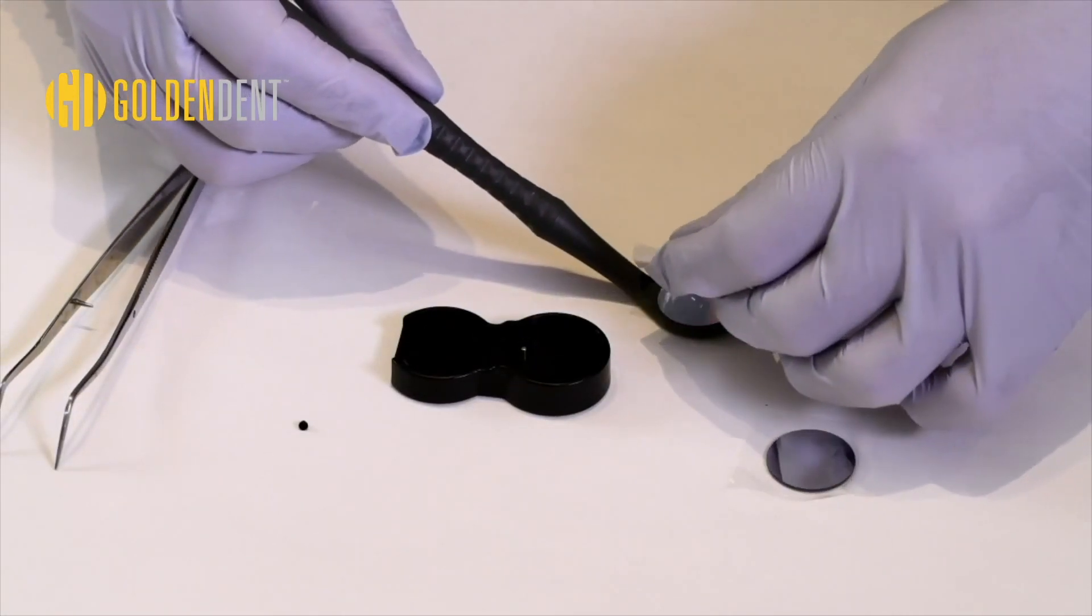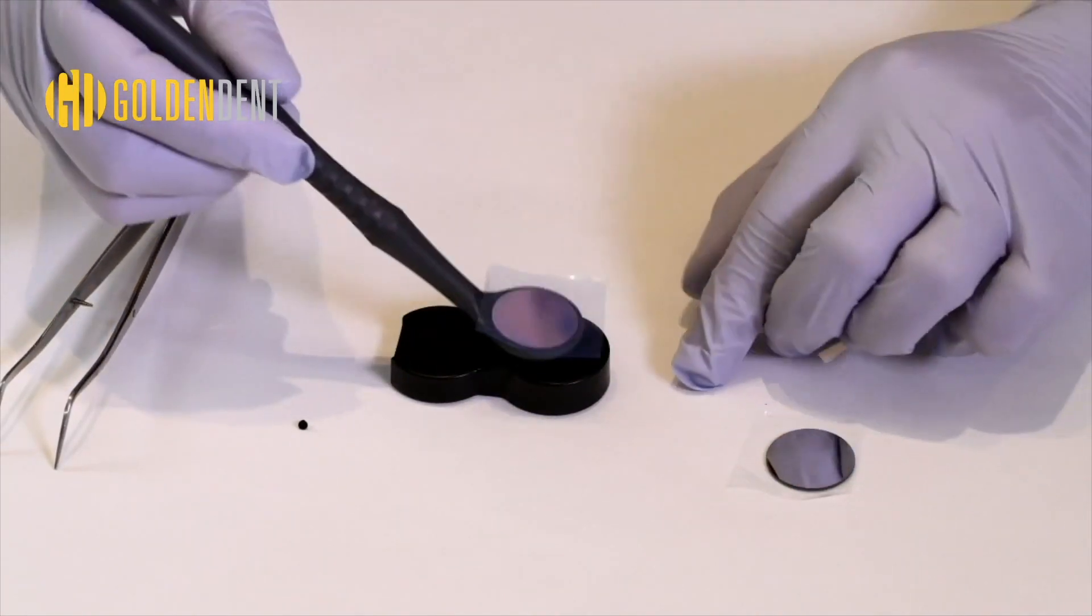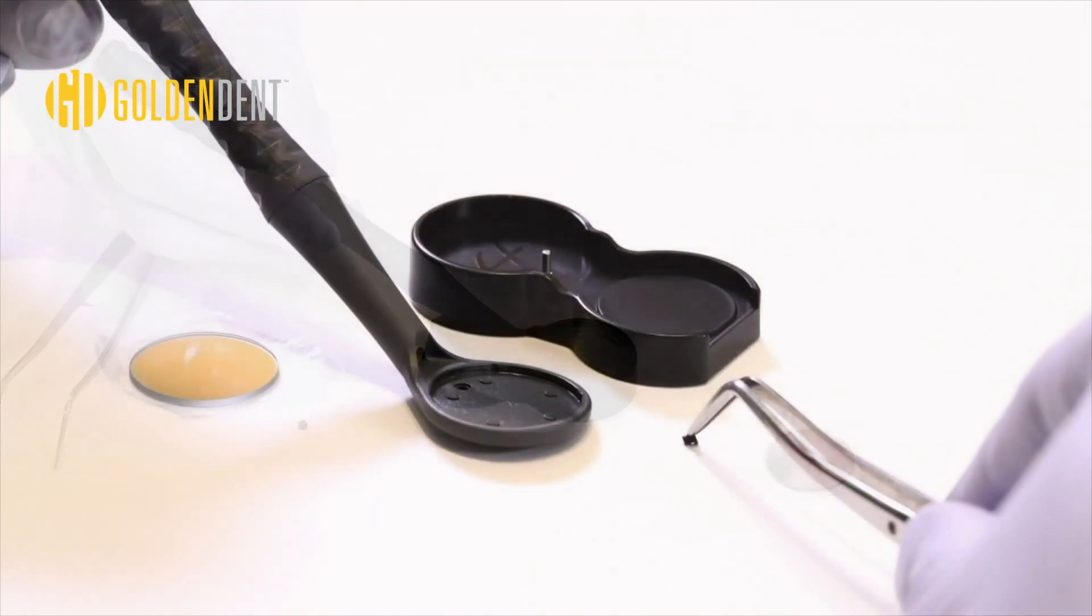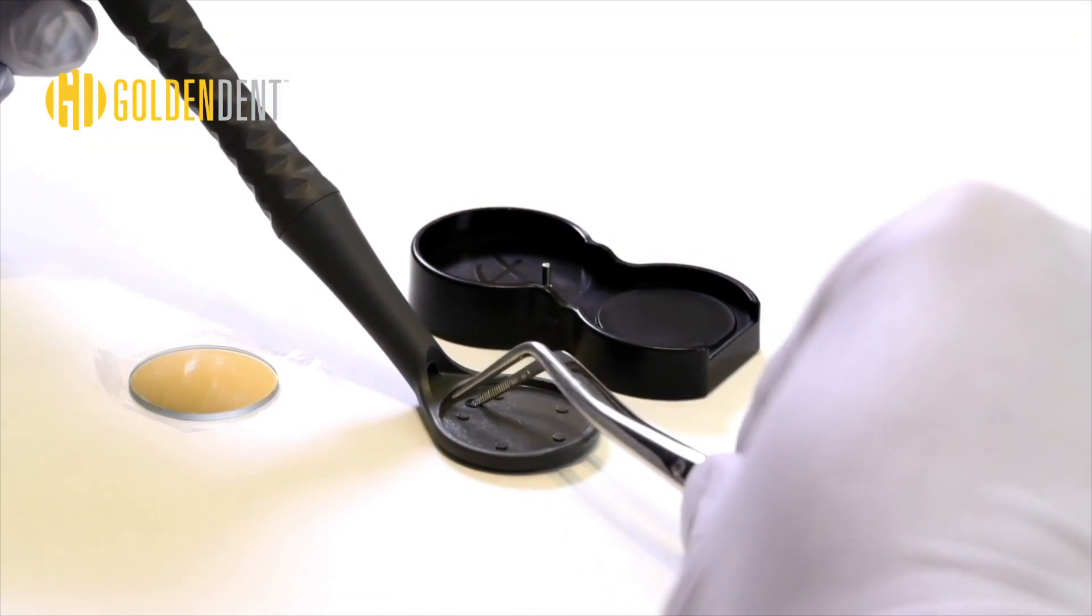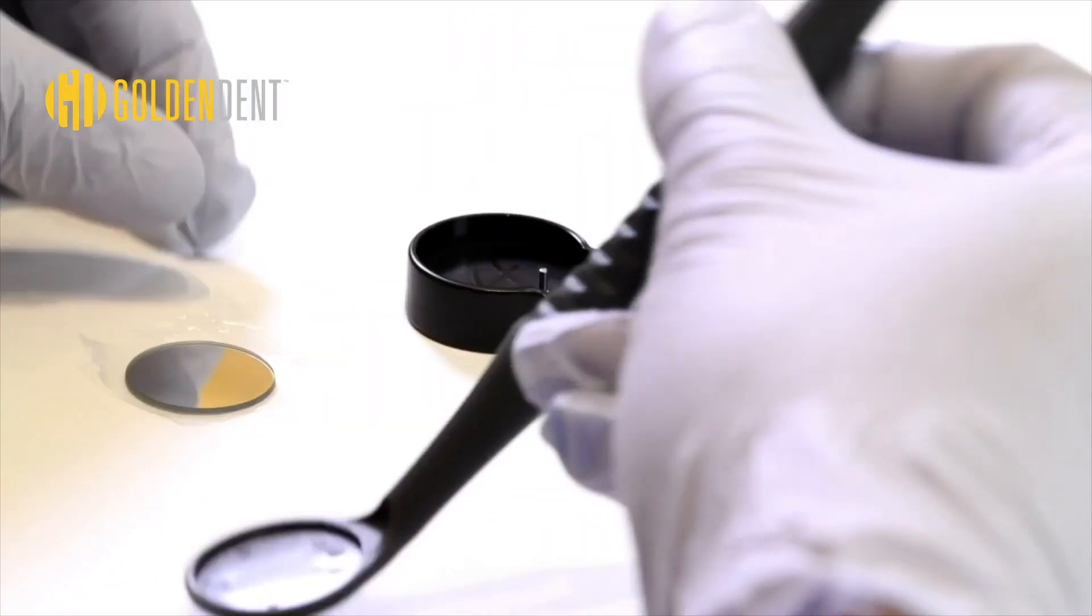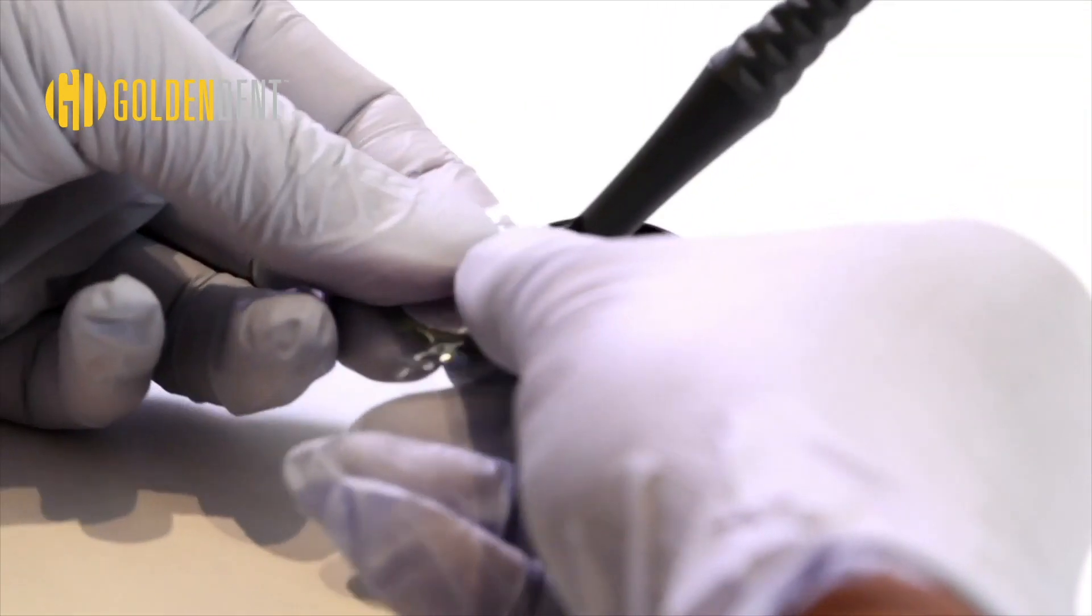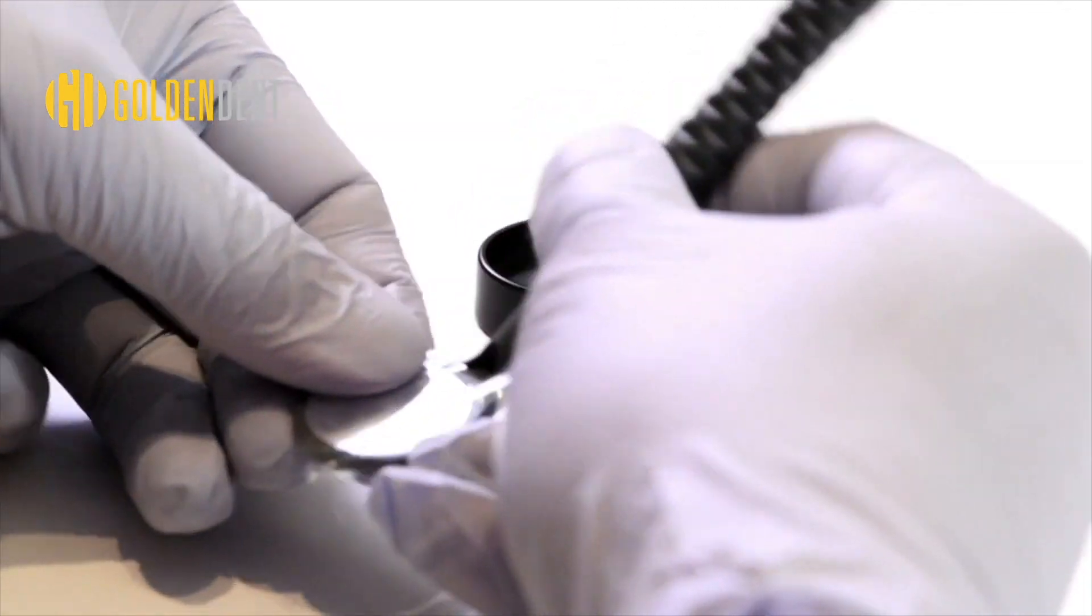It has an easy one-click lens replacement system. Press the back of the mirror directly onto the silver stud of the mirror key to release the old plug and mirror. Then insert a new silicone plug and lens and press the lens onto the flat opposite side of the mirror key to lock it into place.